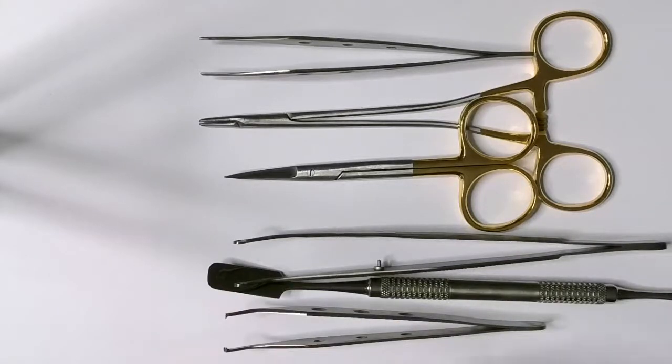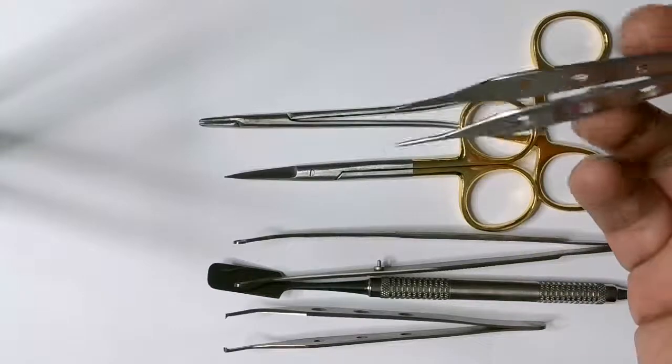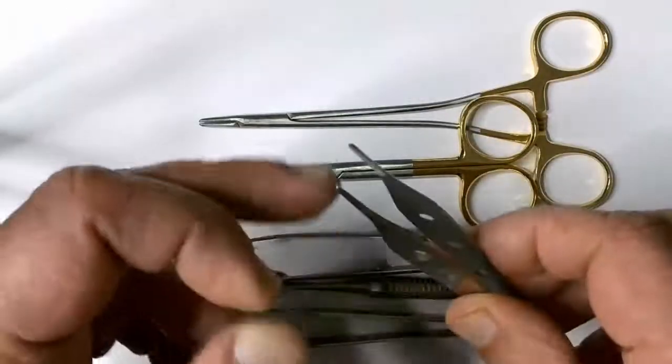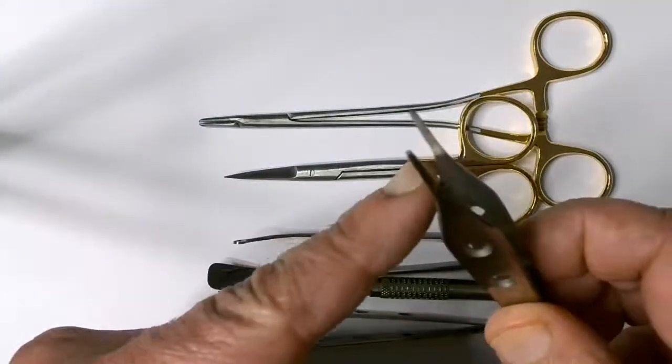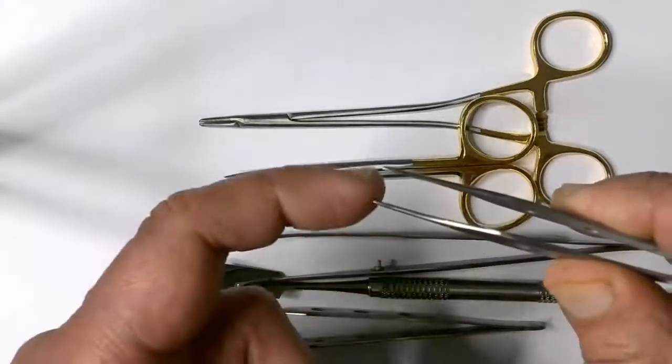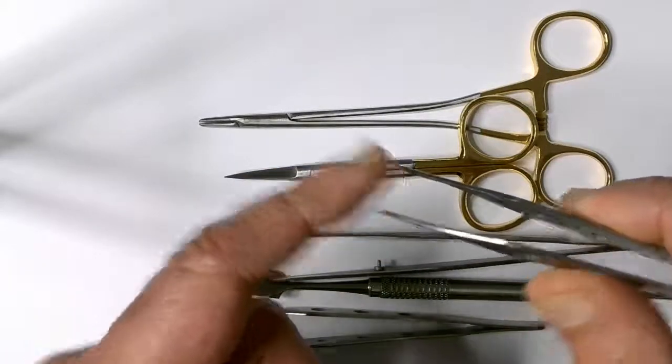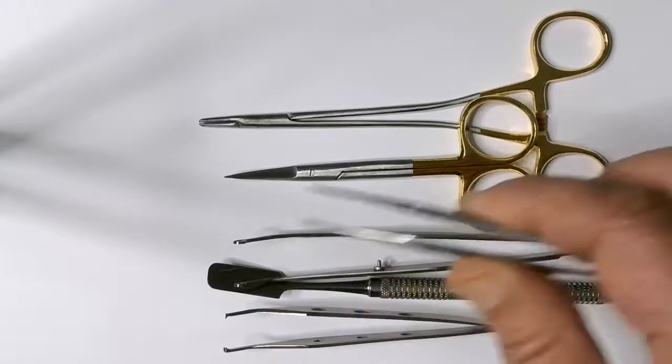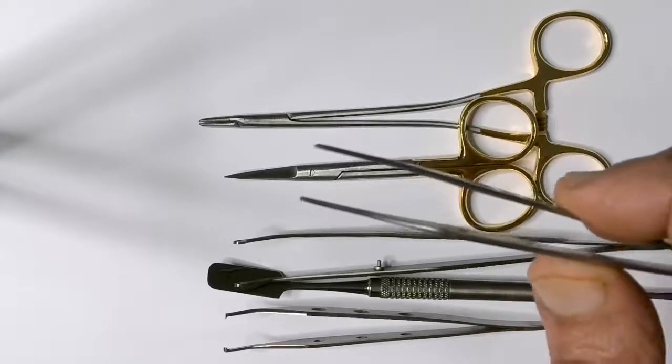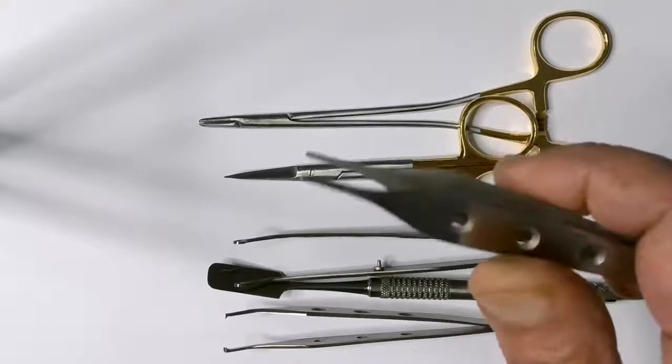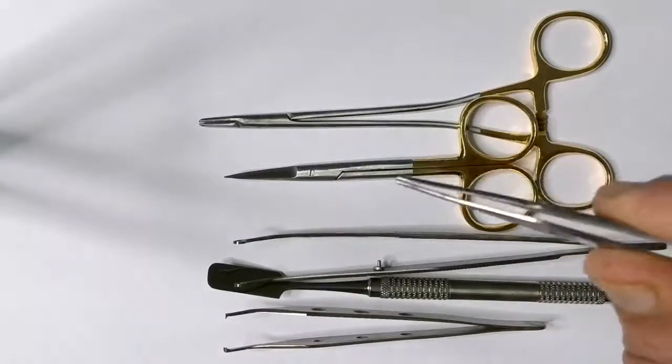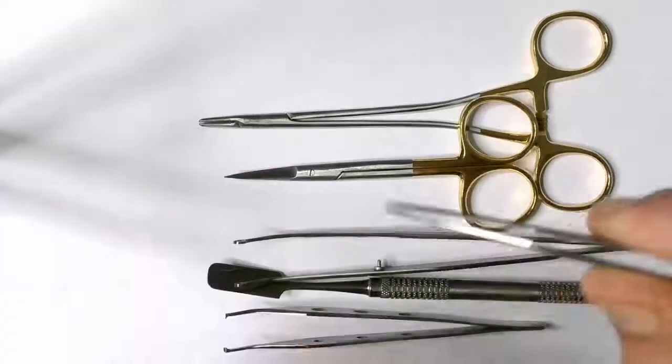Tissue holders. The tissue holders could be straight serrated like these. These are serrated ends. As you can see they hold the tissues quite gently. They have no teeth at the end. Sometimes the toothed bonds which I'm going to show you now could be quite harsh on thin tissue. And if you pull on them they can tear the tissue. This here is serrated. It holds the tissue nicely with no teeth and it holds it within the forceps with these serrations to stop it from pulling away.